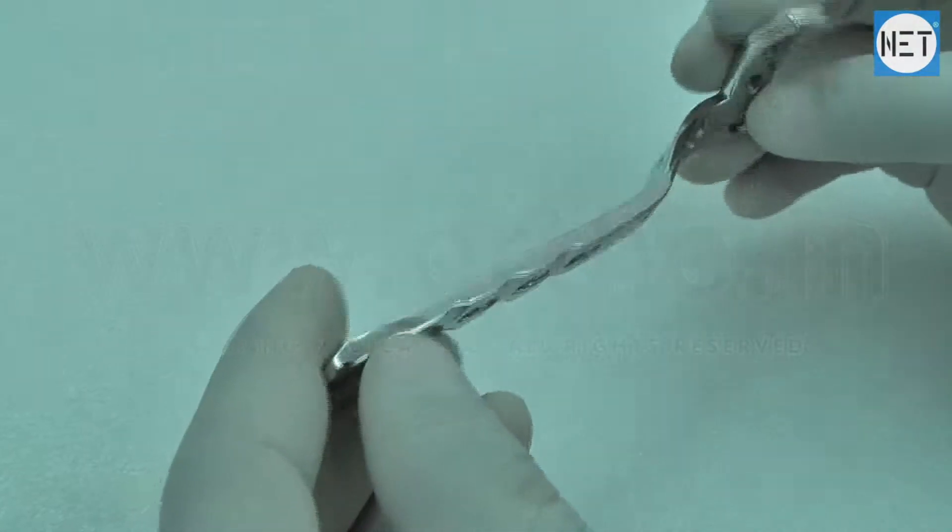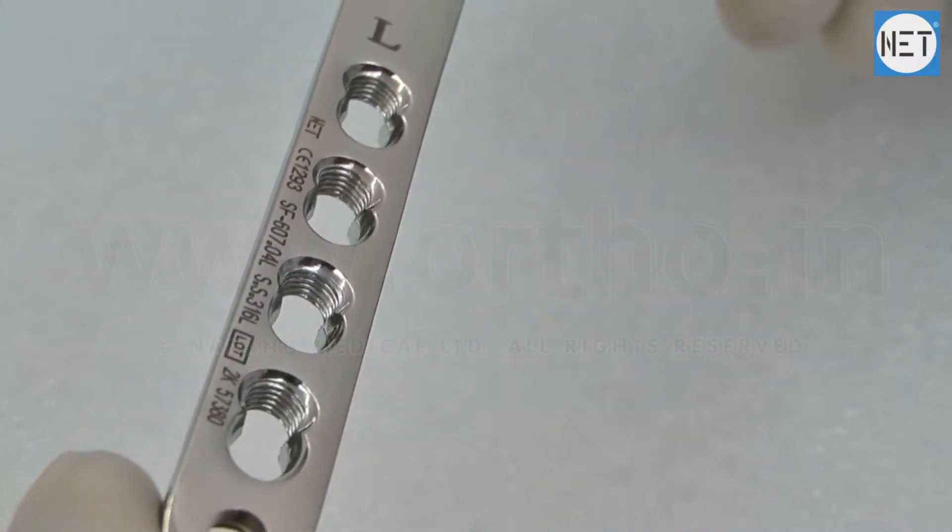These plates can be anatomically contoured to match proximal lateral tibia.